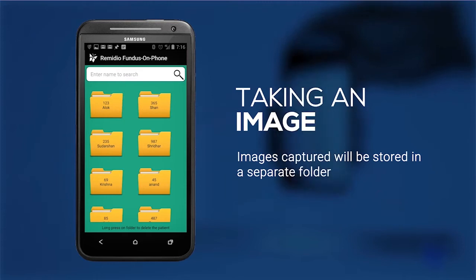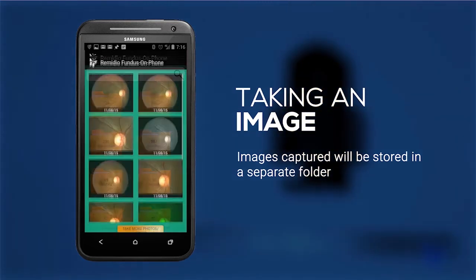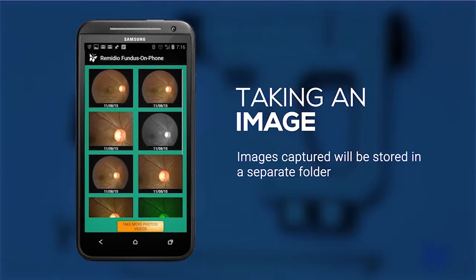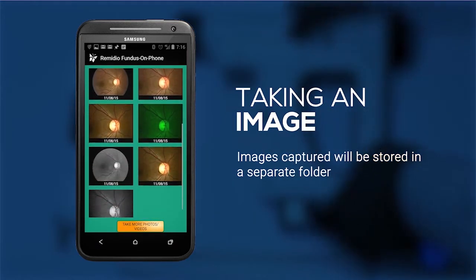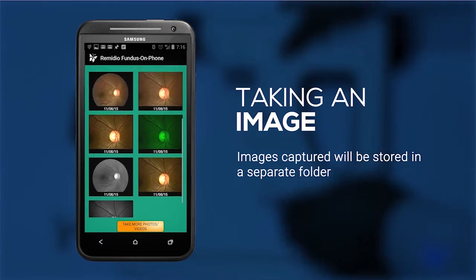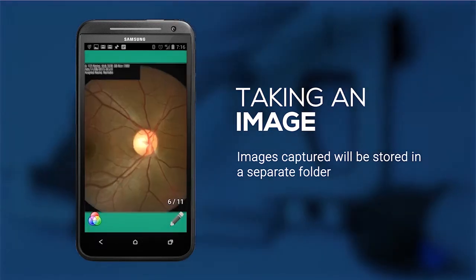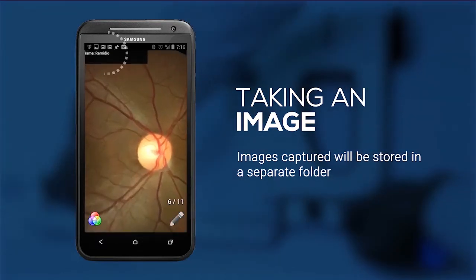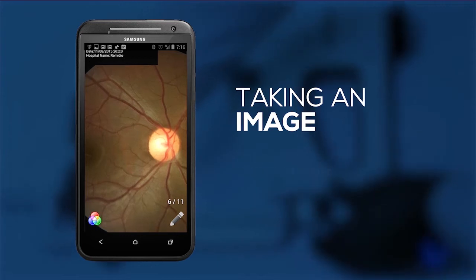Images captured will be stored in a separate folder. Each image is stamped with the patient metadata information for traceability.